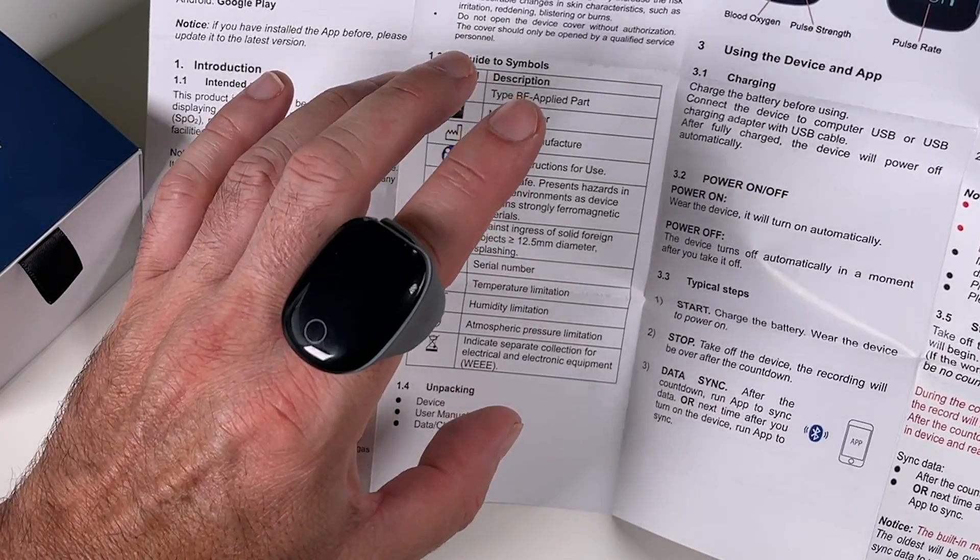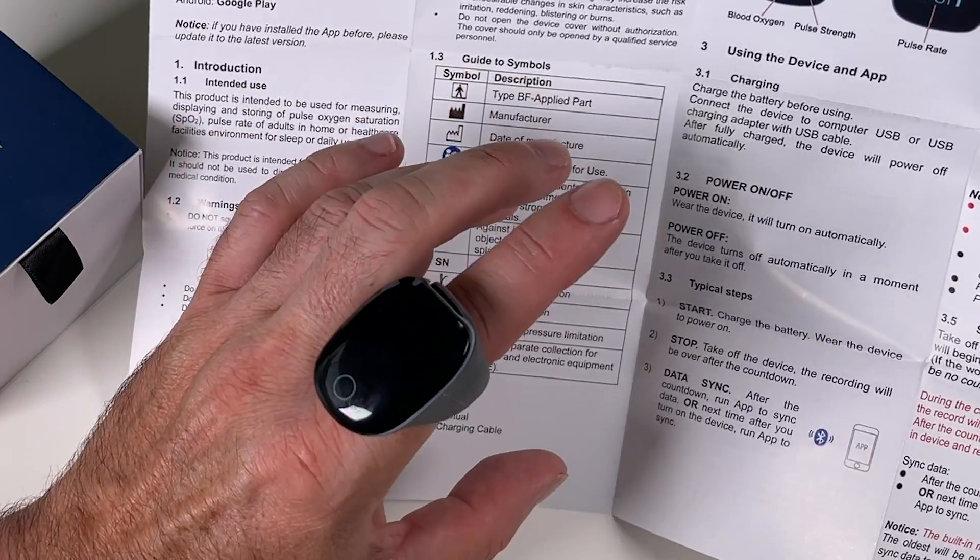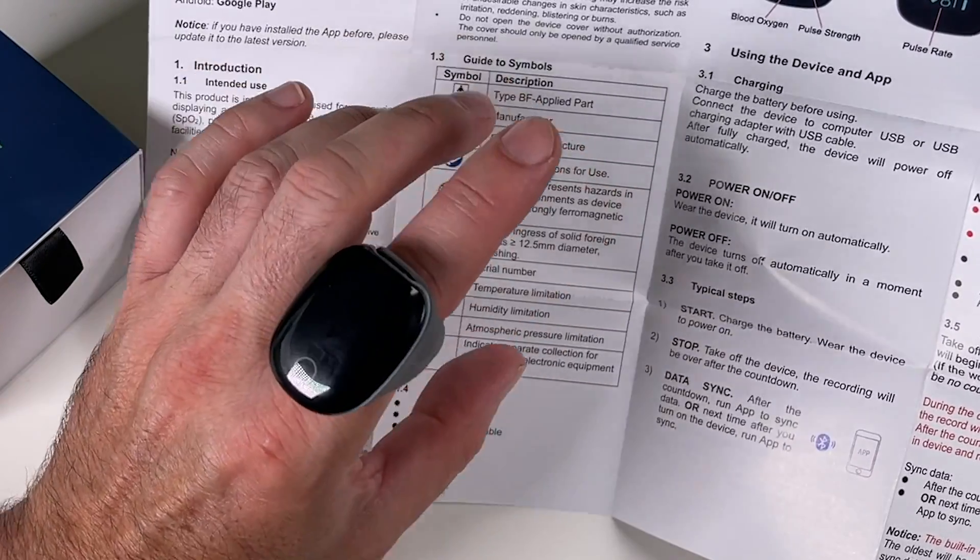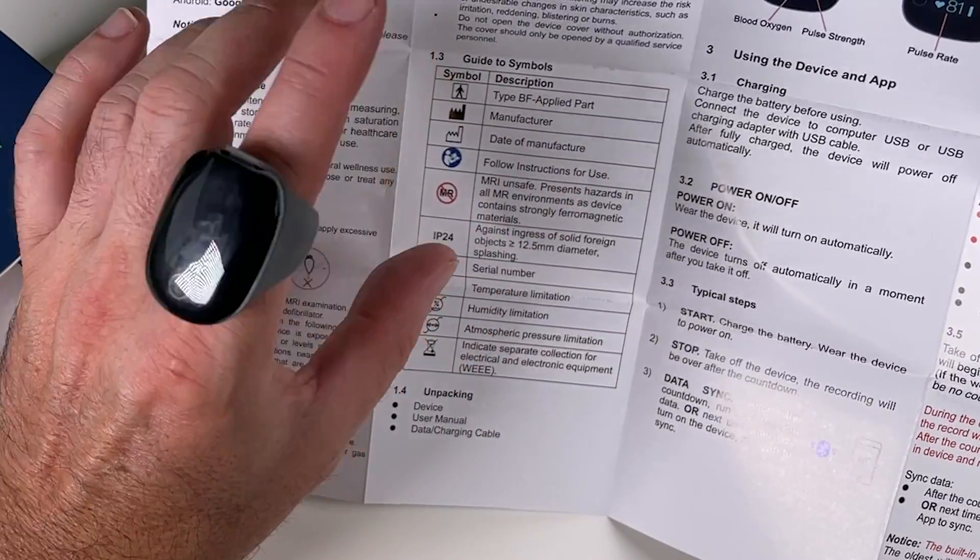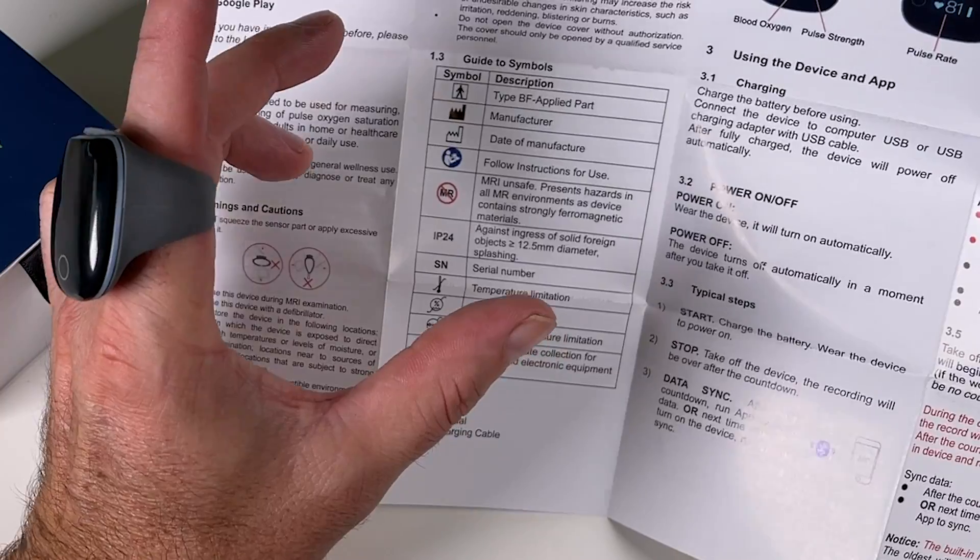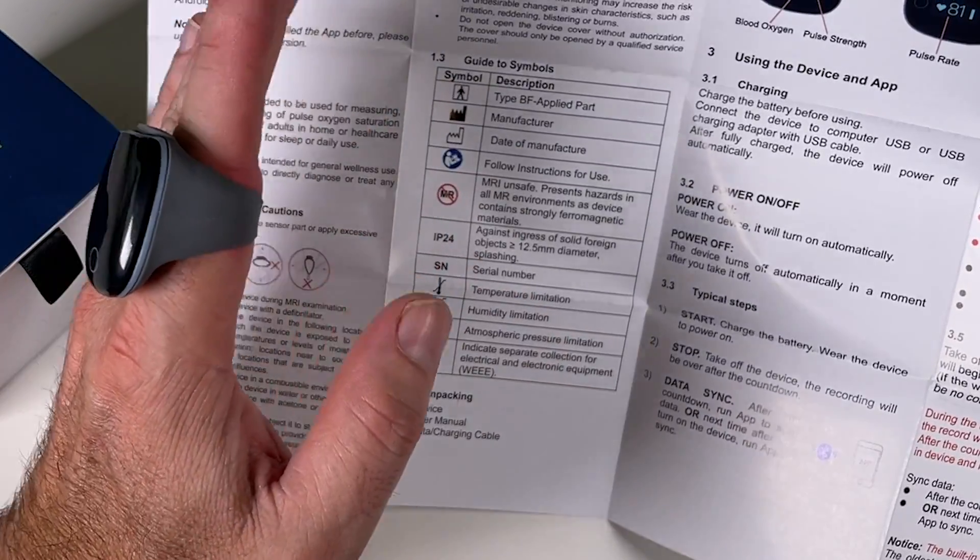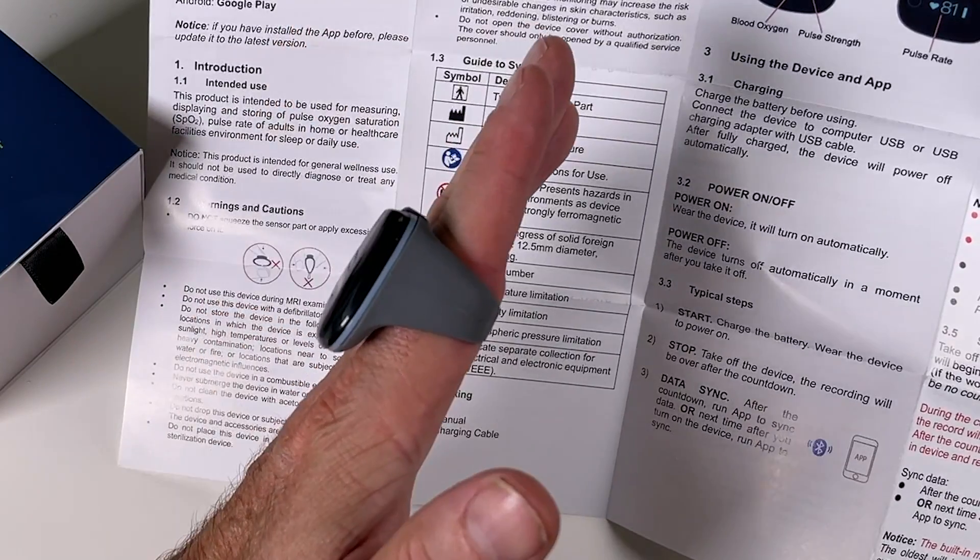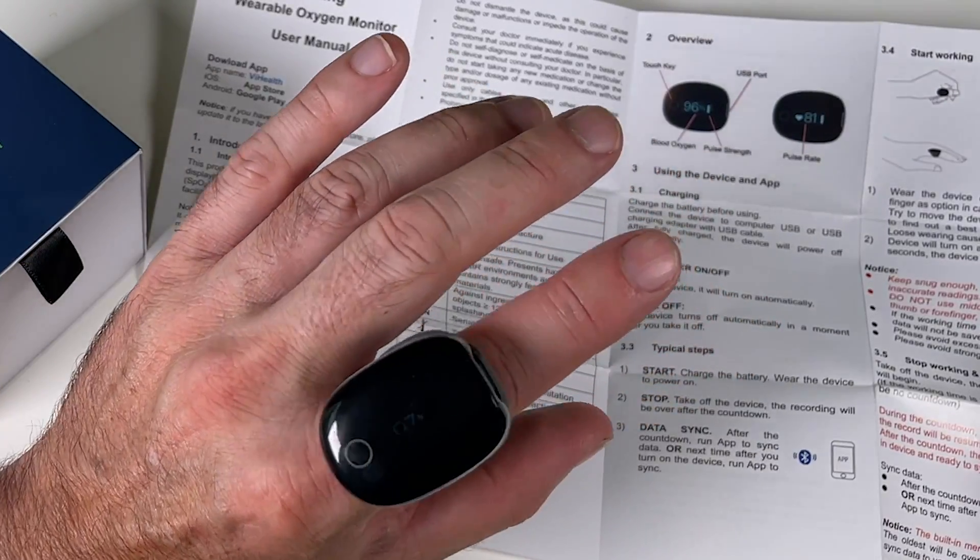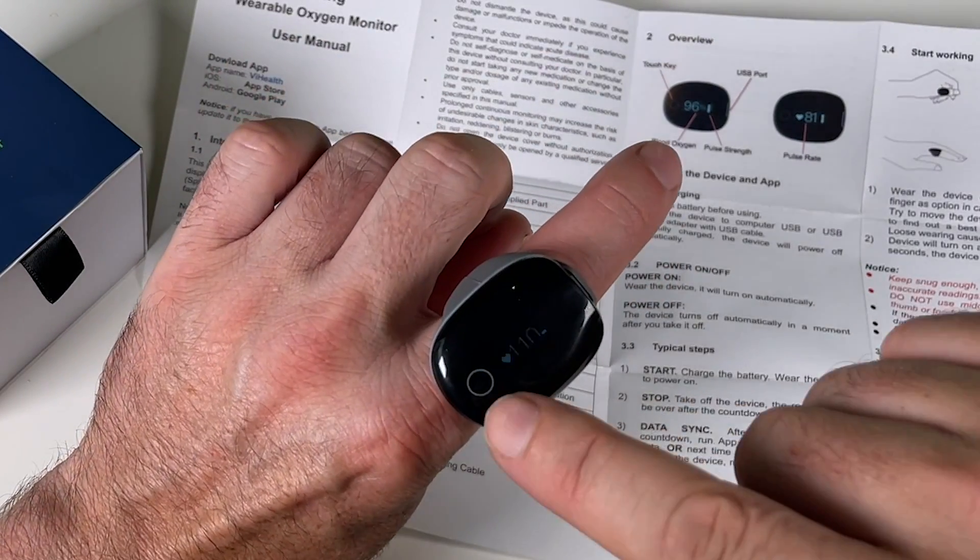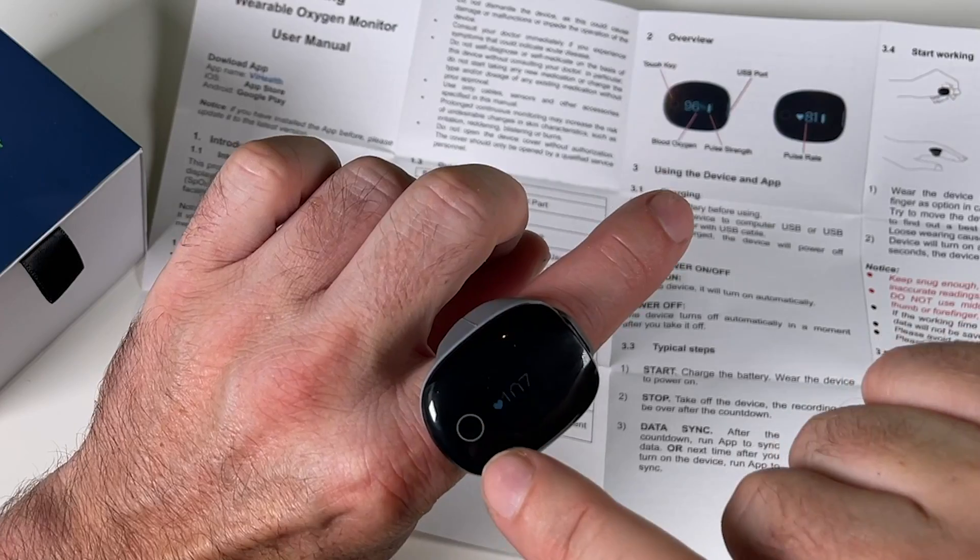If you're wearing it for a night and you want to get up and do something and take it off your finger, if you take it off, it'll start counting down from 10 seconds. If you put it back on in that 10 seconds, it'll keep recording from the same chunk of recording. If you take it off and that 10 seconds goes, then the next time you put it on, it'll provide you with a new recording. So once it's on your finger, it's on. When you connect it to the app, it will automatically sync the time. But you can check the time just by clicking the little button on the top here.